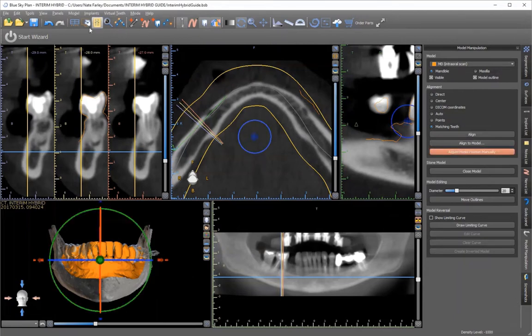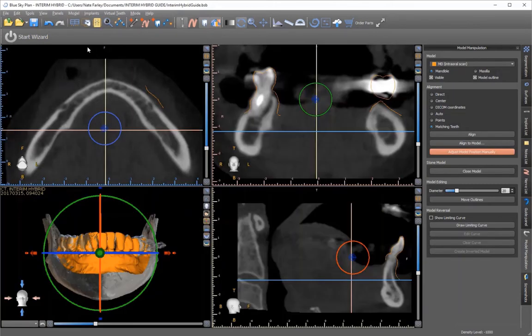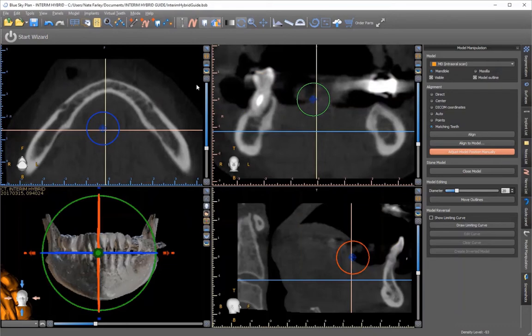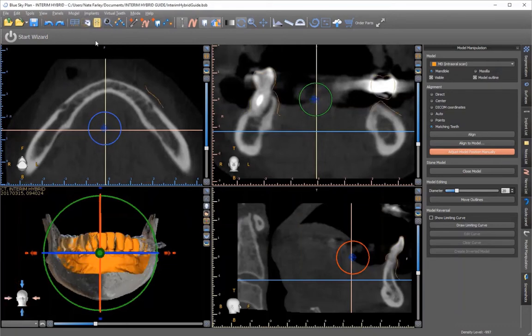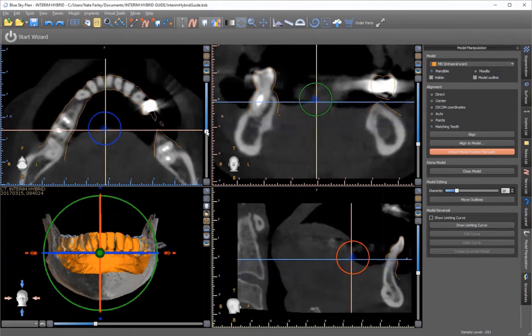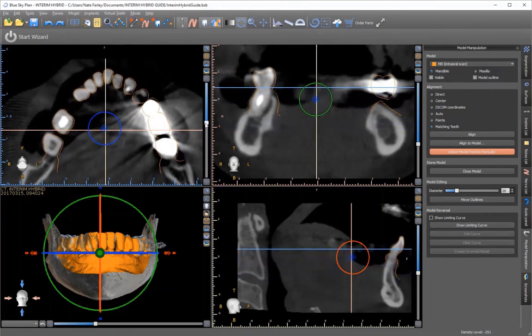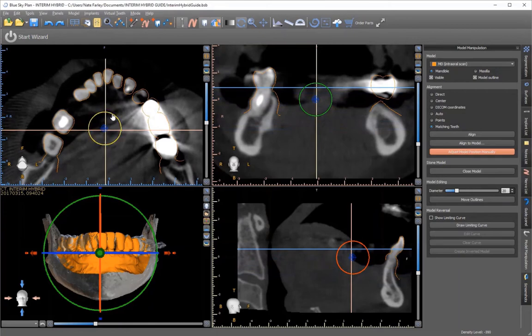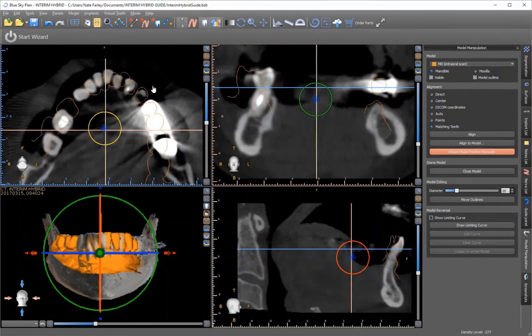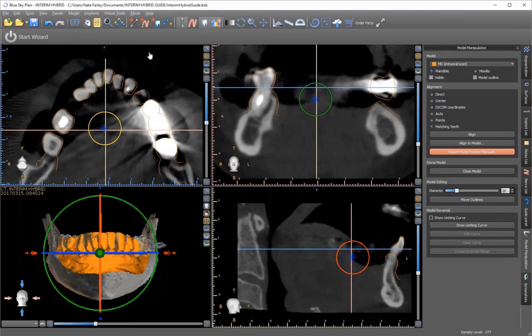At this point, I like to go in and click on the button that allows me to do this manually. As you can see, when you're doing it manually, you're trying to get the alignment of the outline of the STL file to line up with the other teeth.